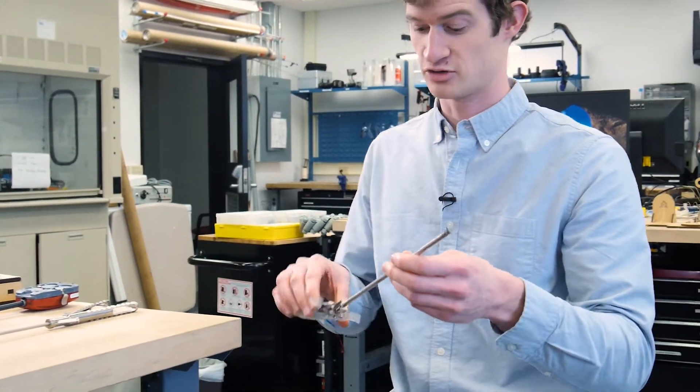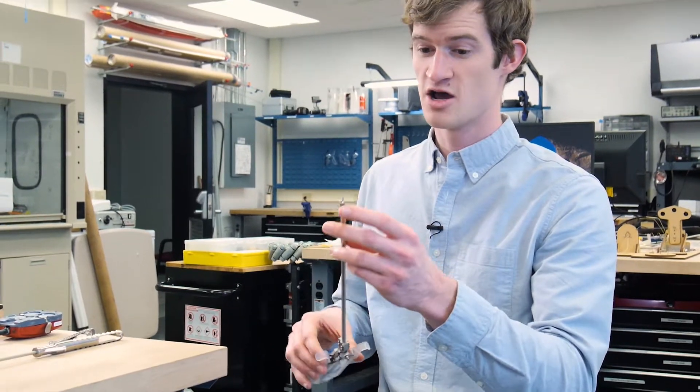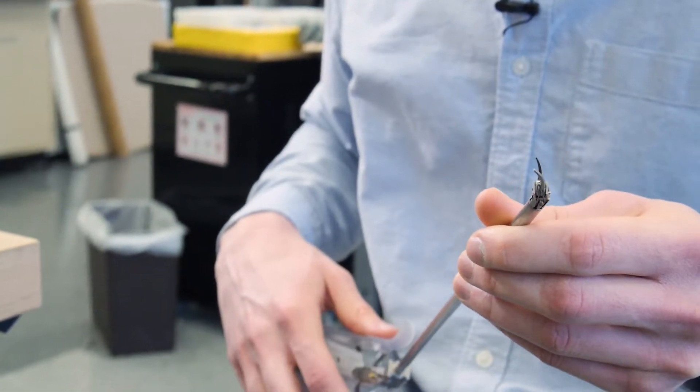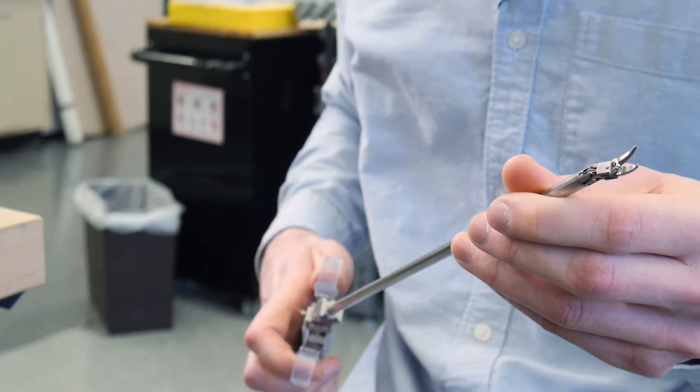So we tried to come up with a low-cost option, which is a manual laparoscopic tool that's just controlled by your hand, but it has a tiny wrist here that allows you to do more complicated motions at the surgical site.